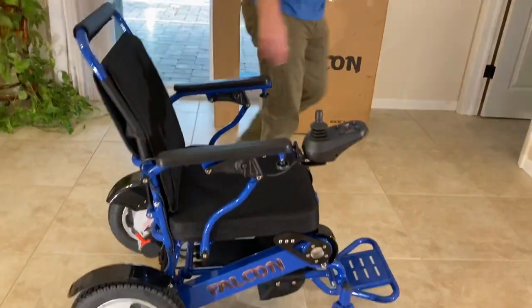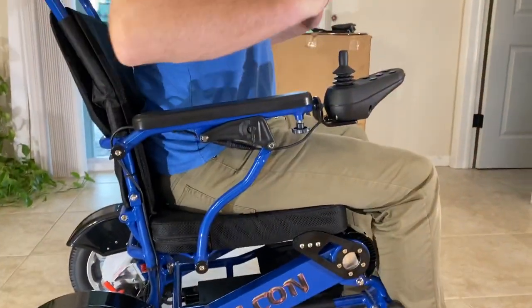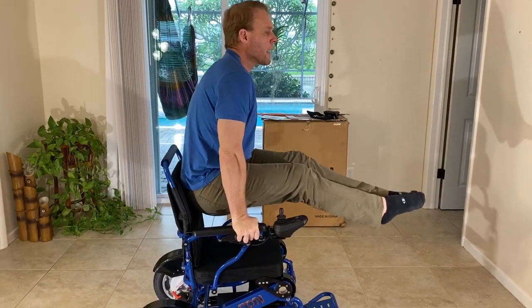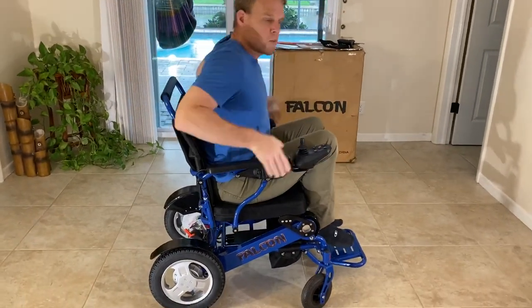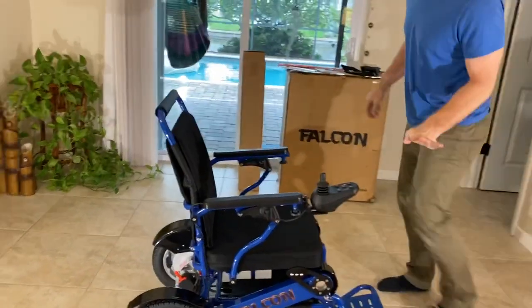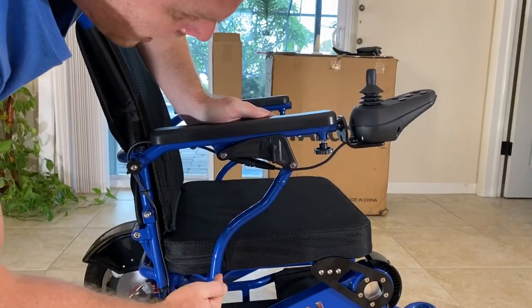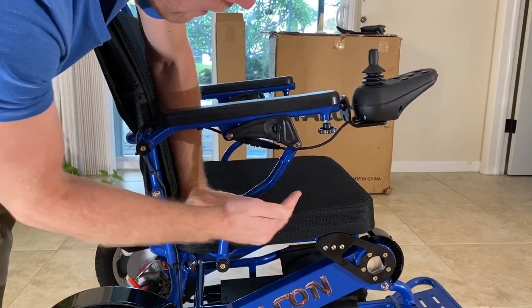Back to the Falcon. Now this chair holds 400 pounds. I want to show that we have the arm rest structure to easily support getting out of the chair. I weigh close to 200 pounds and you can see that I can balance the full weight of my body on the arm rests. I'm demonstrating that we have a very good design for bearing a lot of weight on the actual armrest component of the chair while allowing comfort.